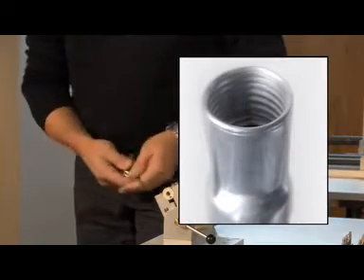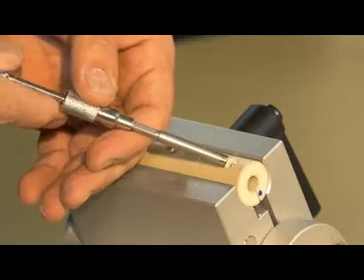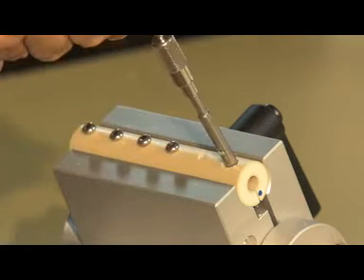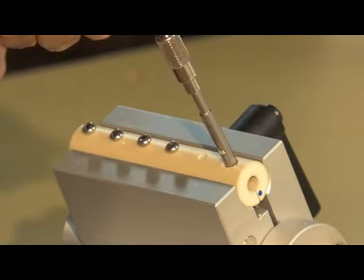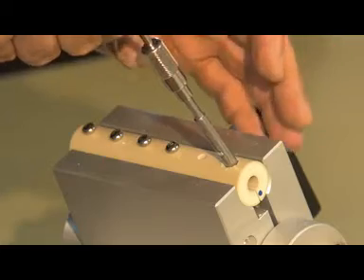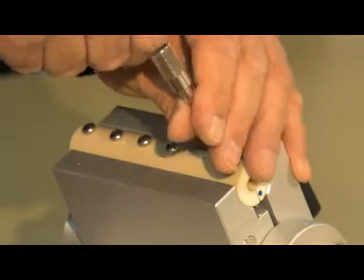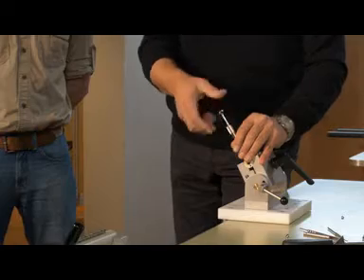This is the instrument with which we extract. I would like for you to place this on the screw and turn it counterclockwise, putting a lot of pressure on it and once it is solid, then just turn the screw out.